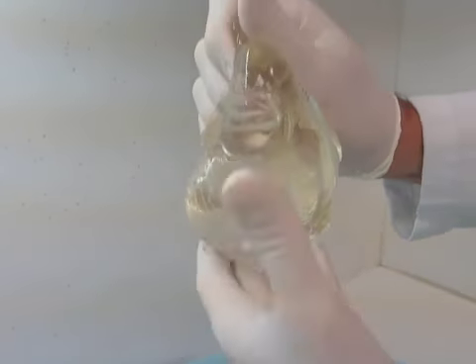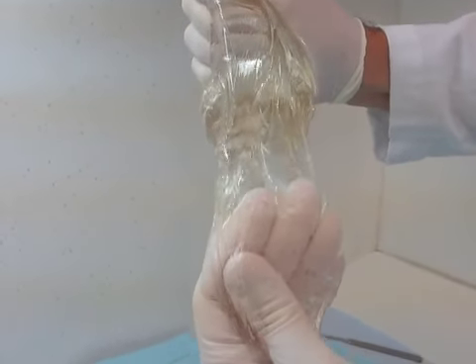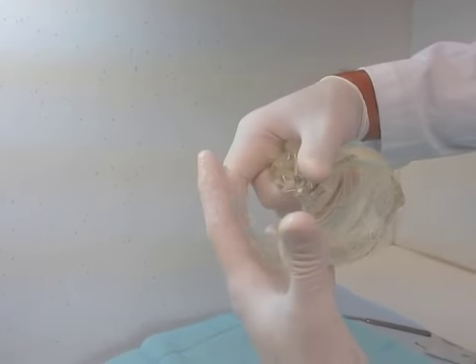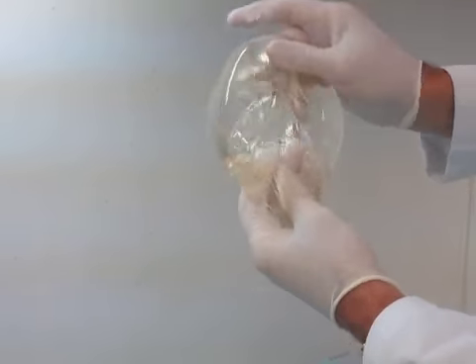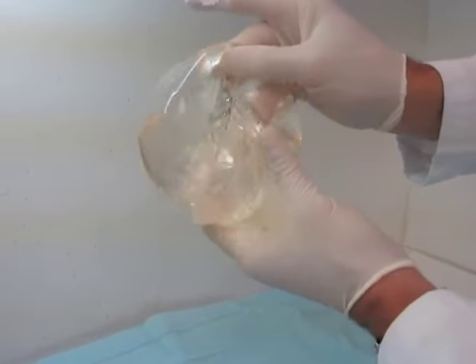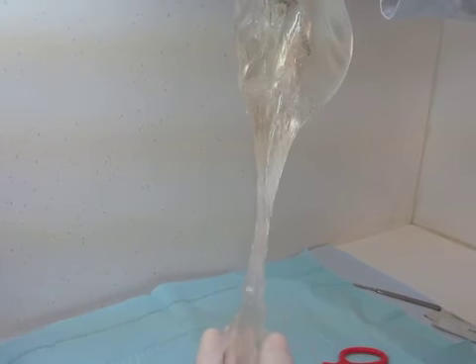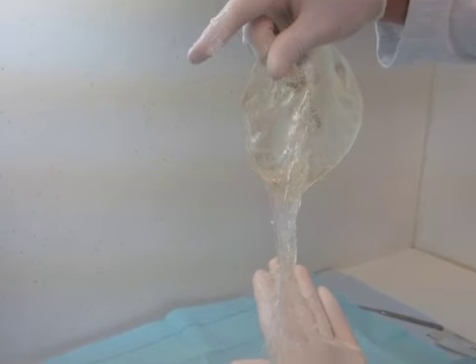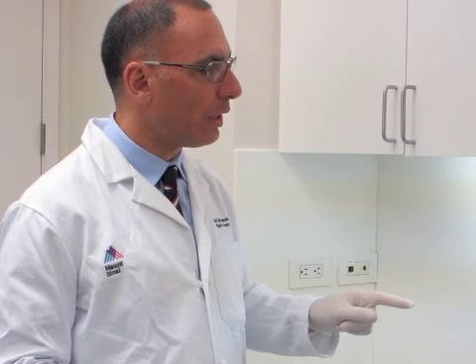So that's the cohesive gel. It's coming out. I'm going to touch it so you see what it's like. And you can see how I think all of these gel implants are very sticky and it's almost like jam. They don't come off once they come on you. It's not like rubber cement. It is very slimy and sticky. So that is the cohesiveness, which it sticks together and it will stay in the implant, but it also slimes around. You can see that it's not just like a gummy bear, which stays put in the shape that it was made. So that's the description of a cohesive gel implant. Not necessarily cohesive, but certainly gel-like.